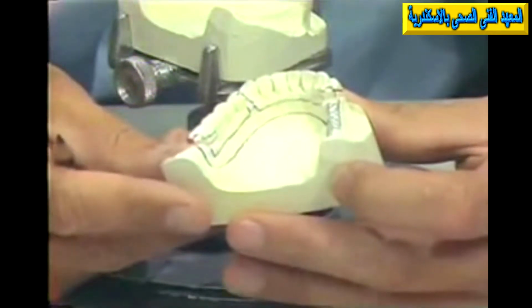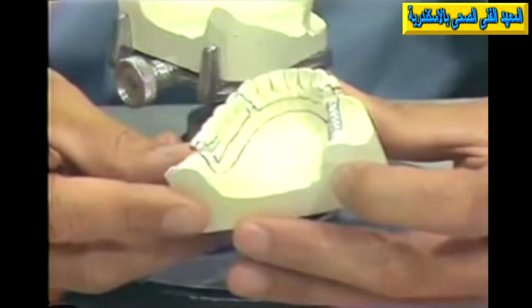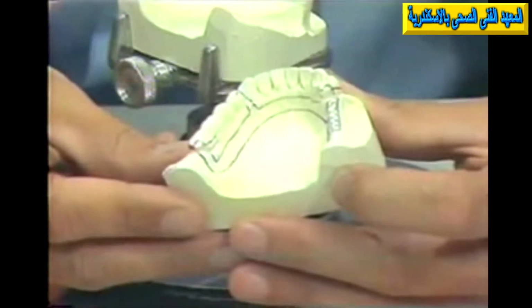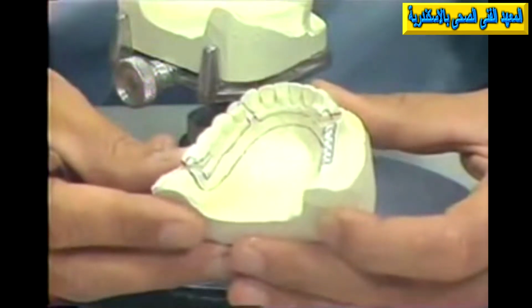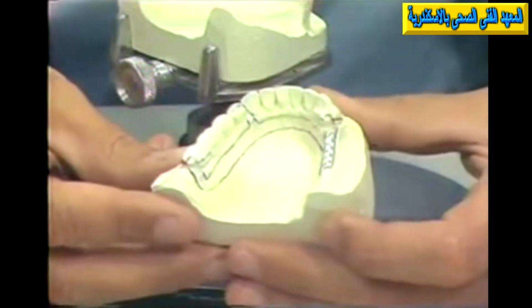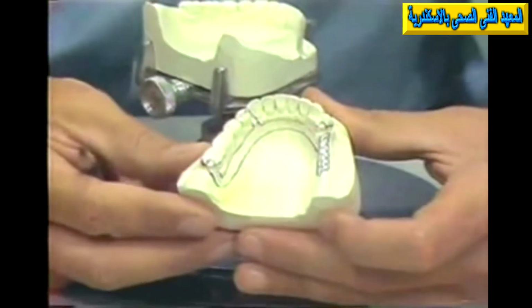Now these areas may have some problems involved, and we want to identify these problems. We want to plan what possibilities exist as far as correcting or bypassing any difficulties in these areas, so that the surveyor is a very handy diagnostic aid in this particular circumstance for evaluating whatever problems may be present. It also would be real handy for us to evaluate any areas of planned retention.